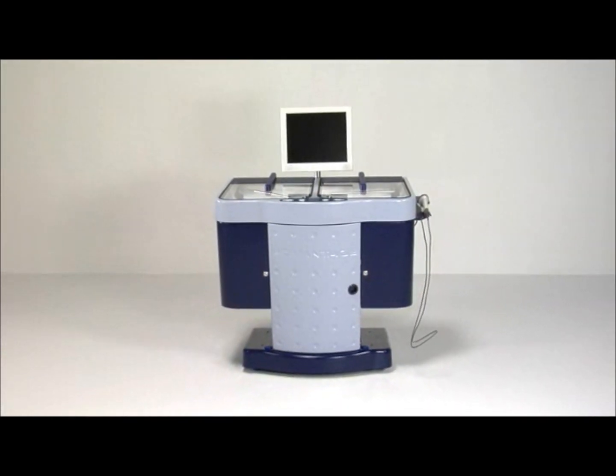The Advantage Plus incorporates the best in-class design and performance for AERs. We know you'll be pleased with this important new addition to your endoscopy suite.